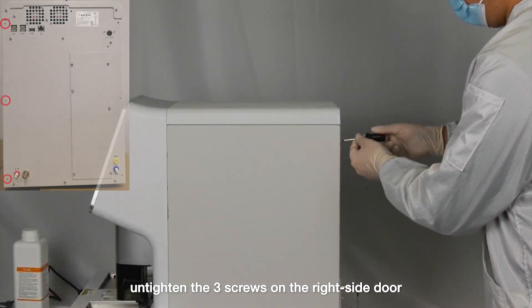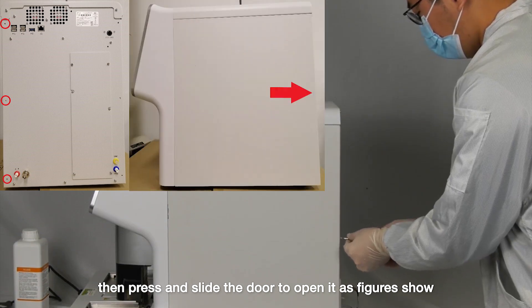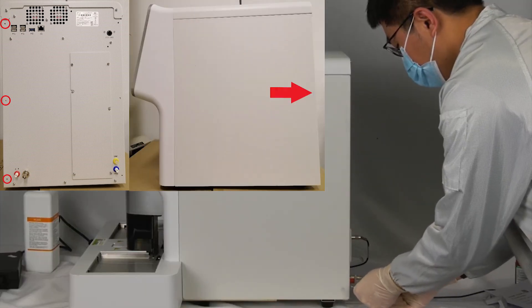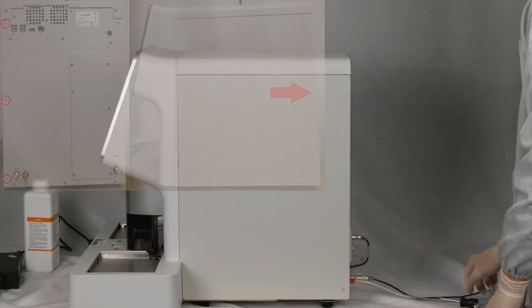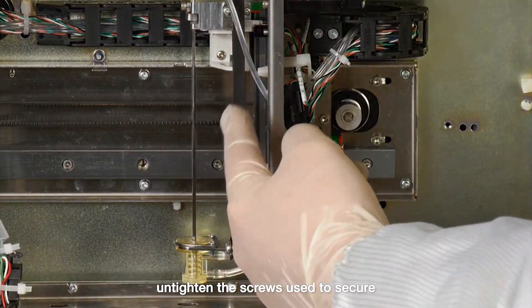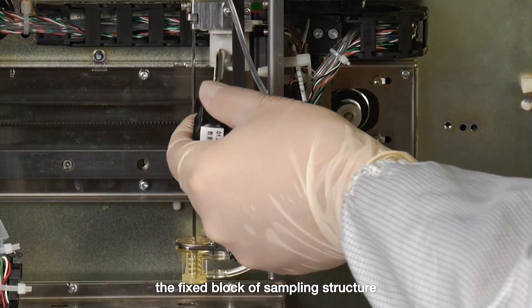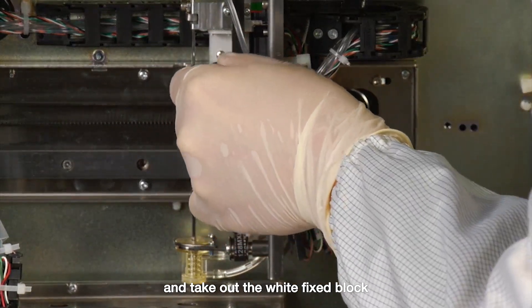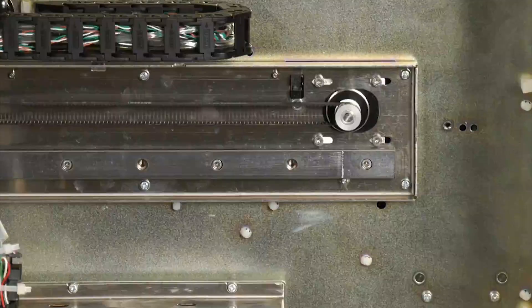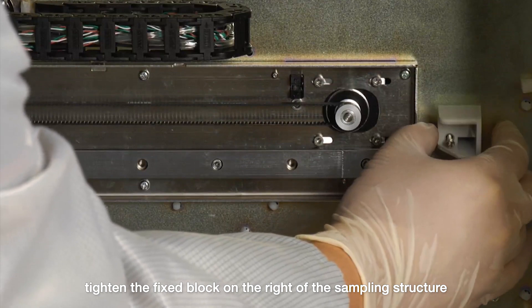Untighten the three screws on the right side door, then press and slide the door to open it as figures show. Untighten the two screws used to secure the fixed block of the sampling structure and take out the white fixed block. Tighten the fixed block on the right of the sampling structure.